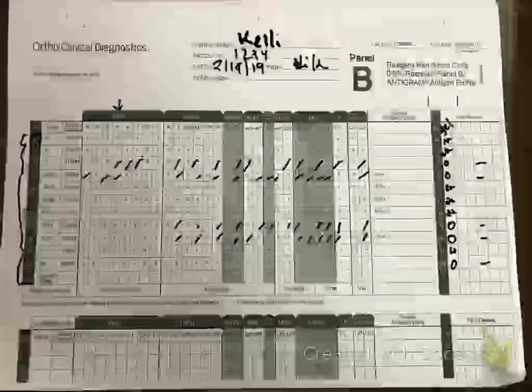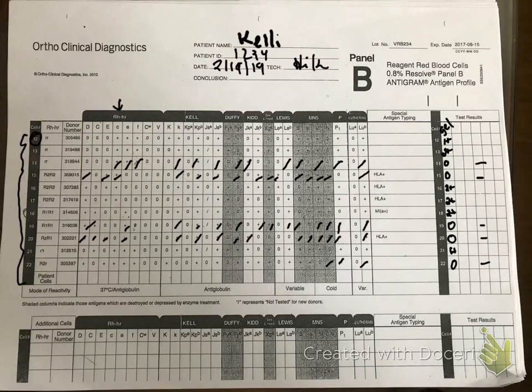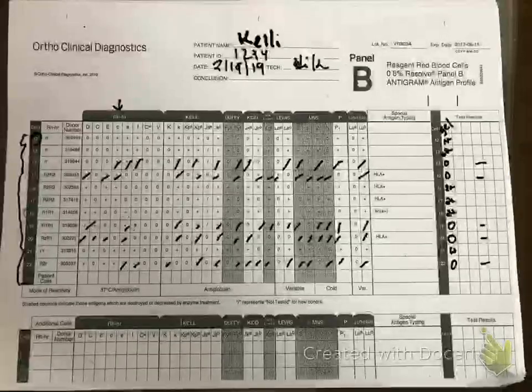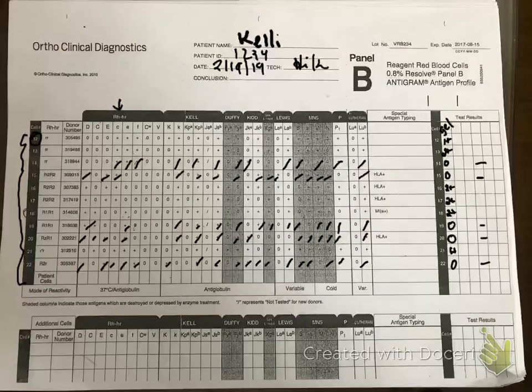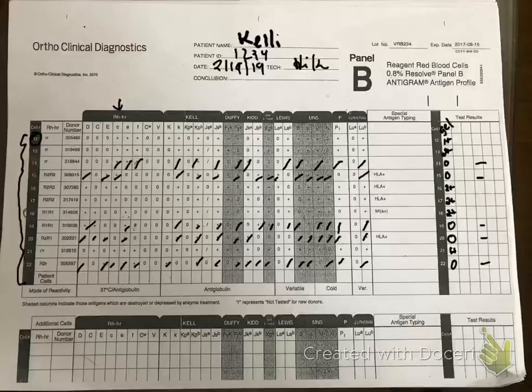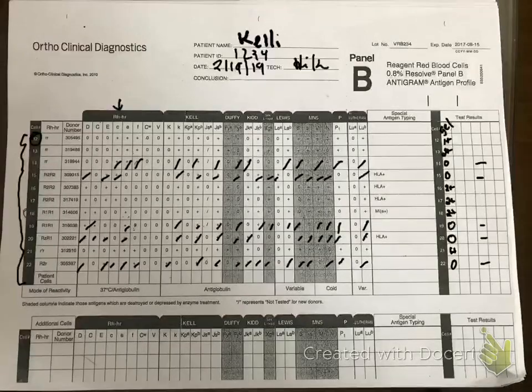I always cross everything off — I'm very visual. As a supervisor I required my employees to do this, and the pathologists reviewing this afterward want to see it. Once I've done all my crossing off, I'm ready to rule out. AABB requires us to have two homozygous cells to rule out an antigen.